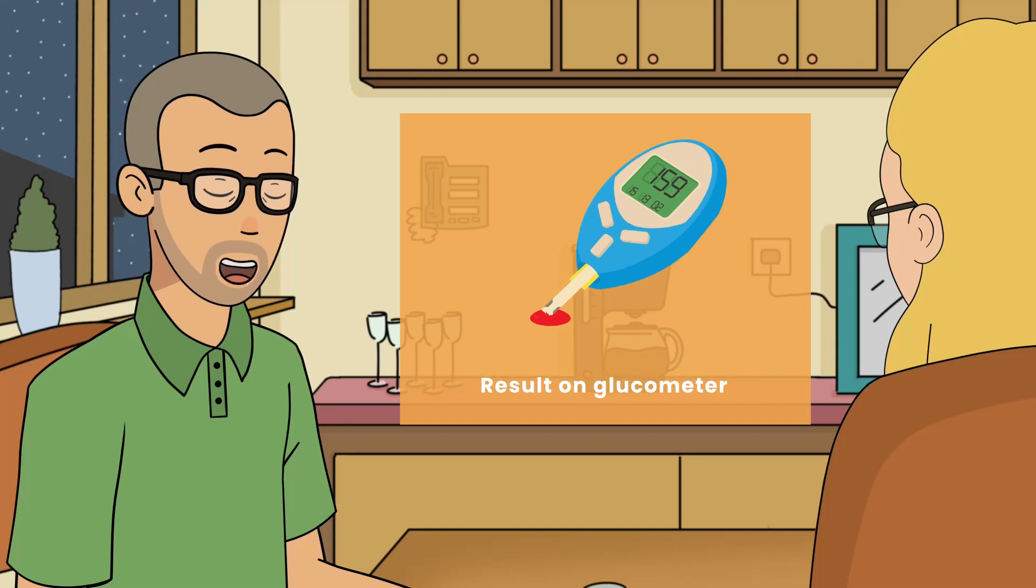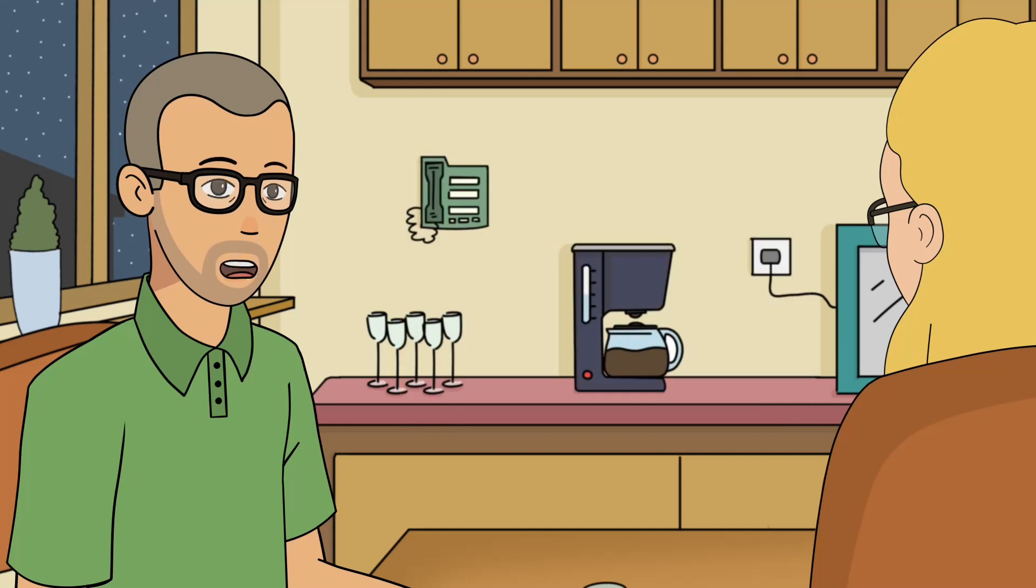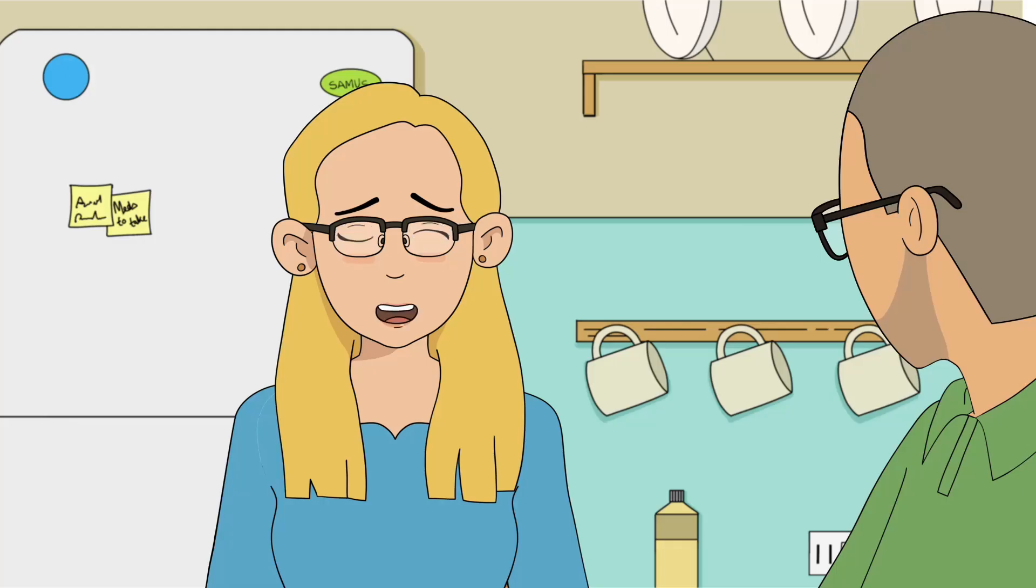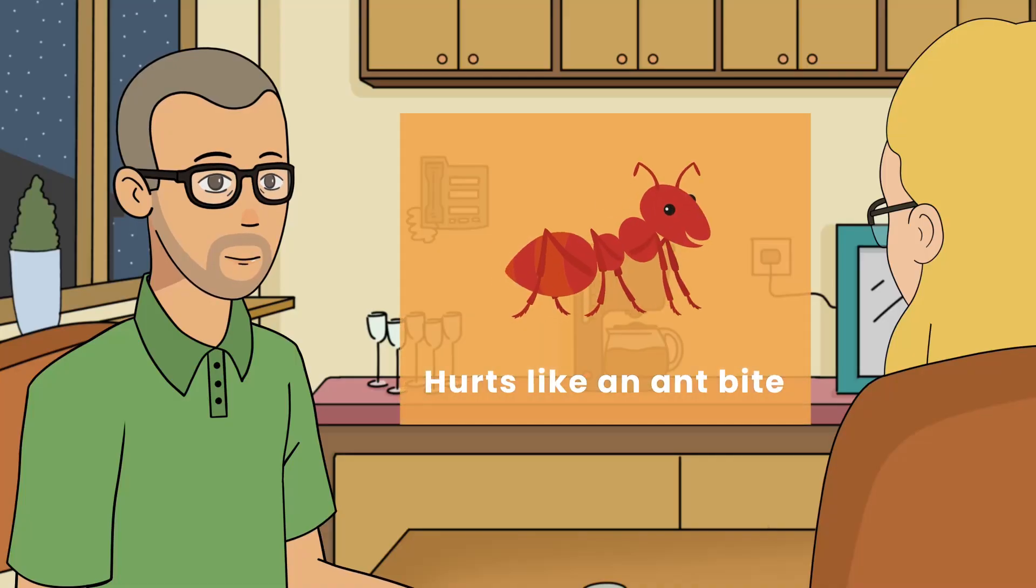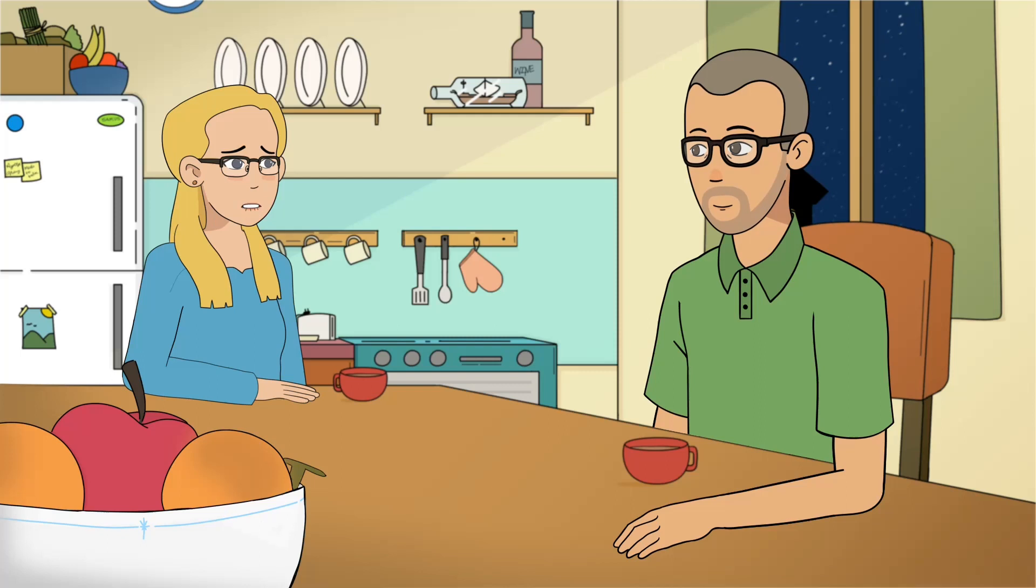On the screen, ta-da, and it's done. It's as simple as that. Doesn't it hurt? It does, but it's more like an ant bite. I feel queasy at the sight of blood. Well, it's just a tiny drop of blood you need.